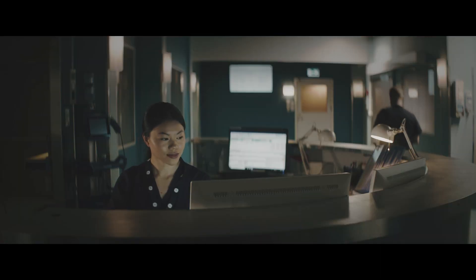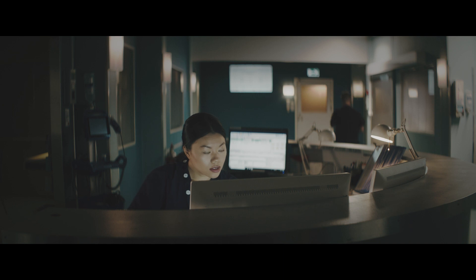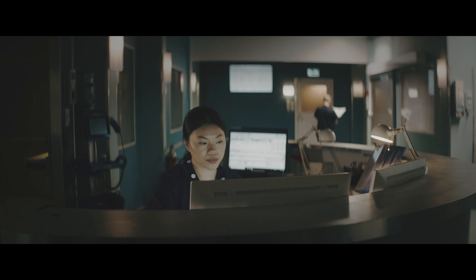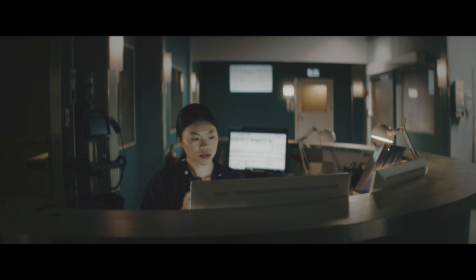While ward clinical practices may differ from hospital to hospital, this video is intended to demonstrate a typical Portrait Mobile clinical workflow.